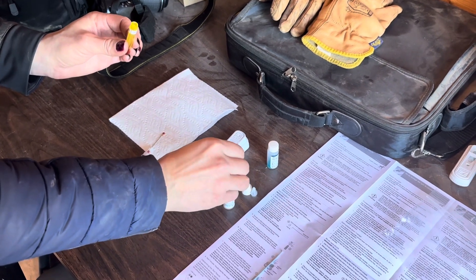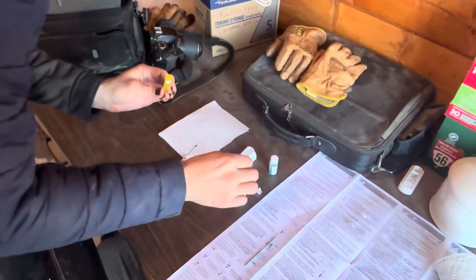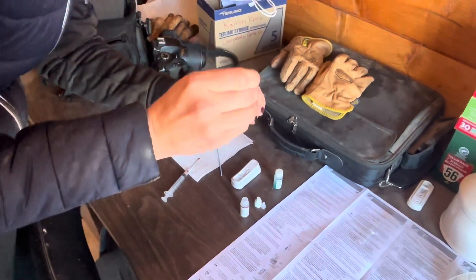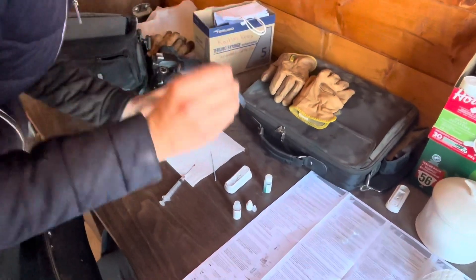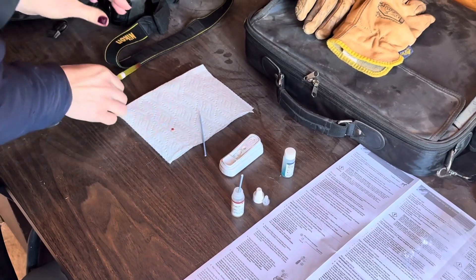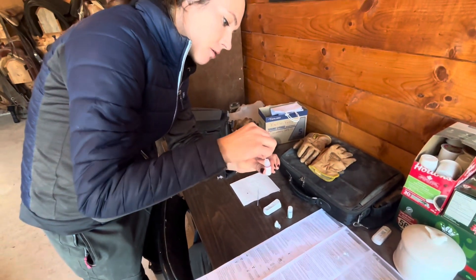Not quite all cleared out there — okay, pretty well cleared out now. Then we're gonna use the second dropper and get a second dropper of blood. Go in and swish that around in your solution. You want to make sure that's completely off of the end of your loop there.